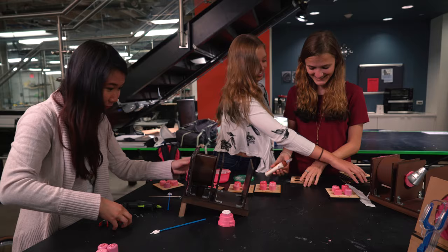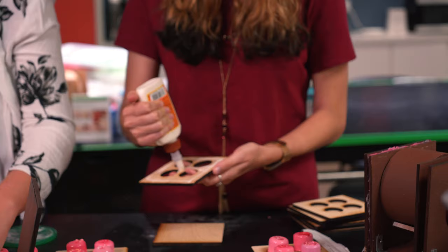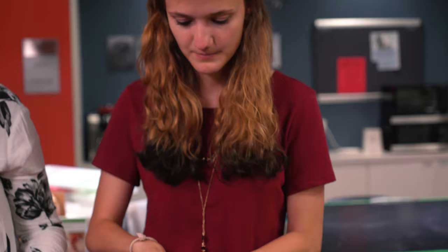We've already started reaching out to manufacturers to see if we can get it mass-produced, so that not only will we be doing workshops, but we will be taking our models and leaving them there for the doctors we train to keep training other doctors.